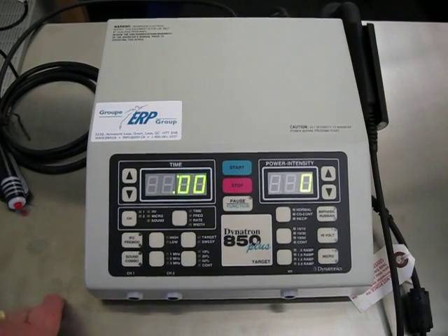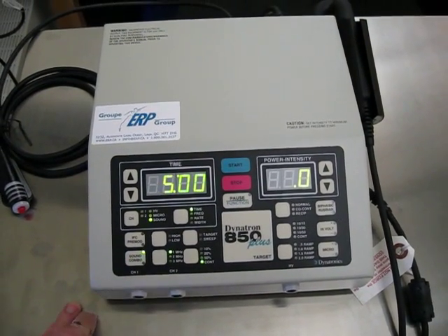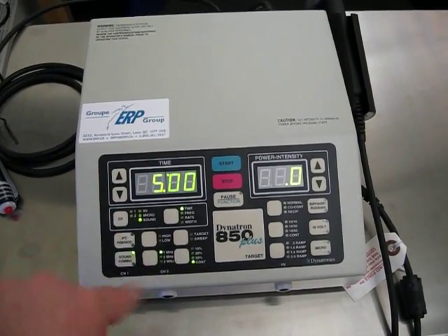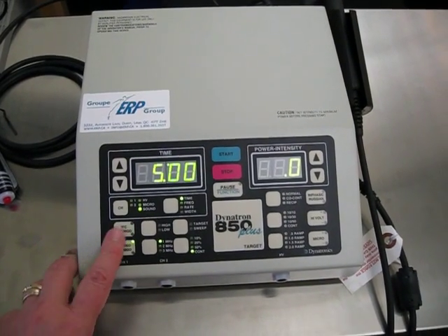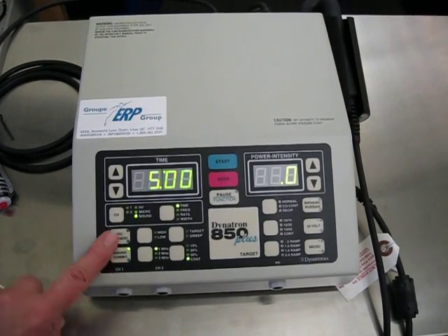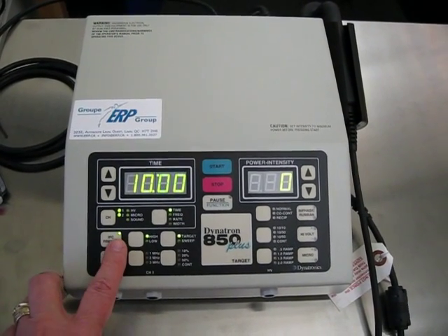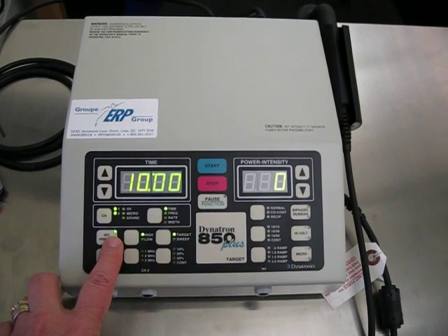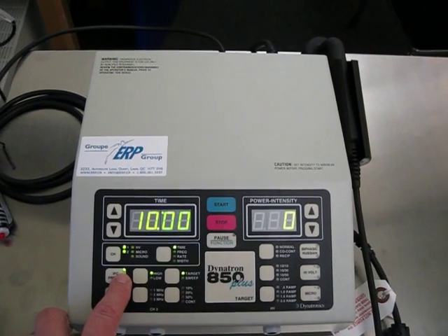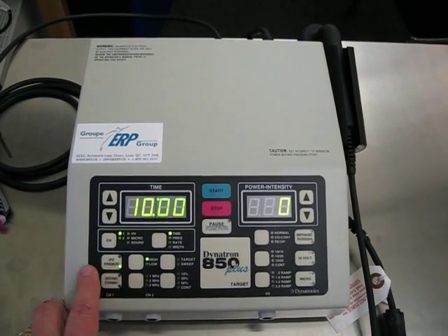Same way as if you were doing it with ultrasound — if you were using it for ultrasound, you would click the bottom, you have a preset of a specific time, and then you would have to input your values. Today we're going to look at the interference current, and that is this toggle right here. If you have it on and the upper part is lit up, it is specific to interferential or four-pole quadrupolar. If you have it in the lower one, that's premodulated or bipolar.